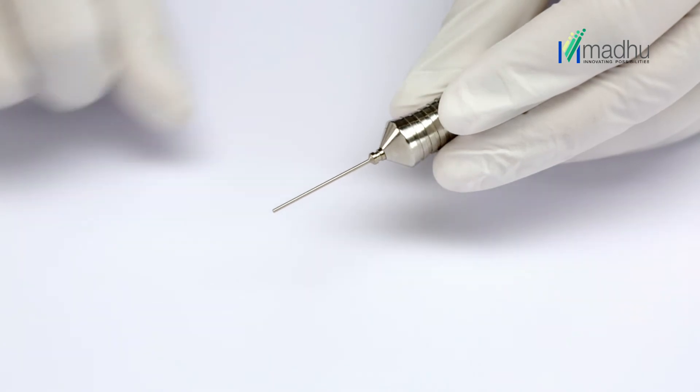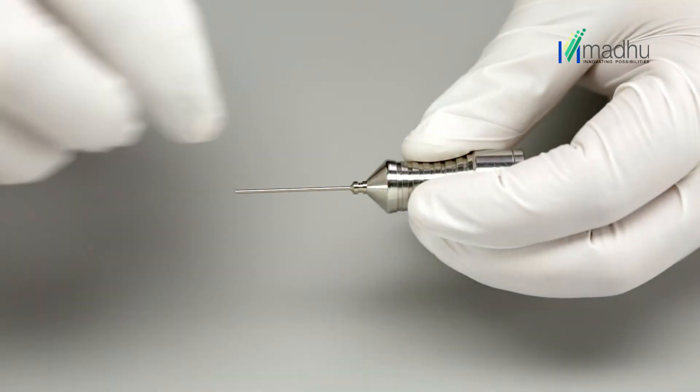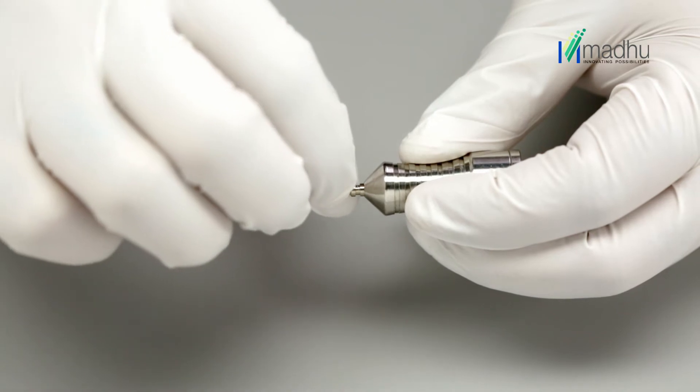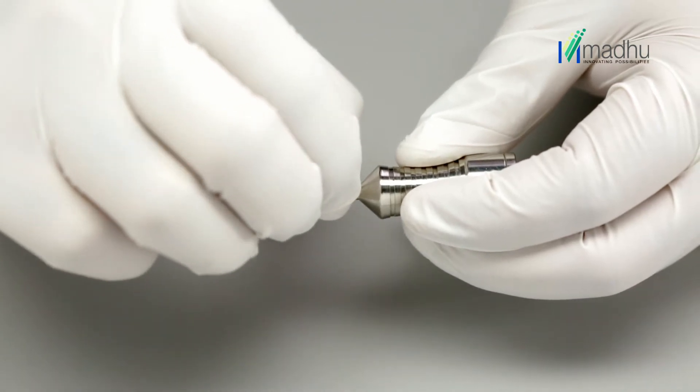Check the magnetic bond between the intraocular magnet handle and magnet tip by pulling the tip outside with minimum force.